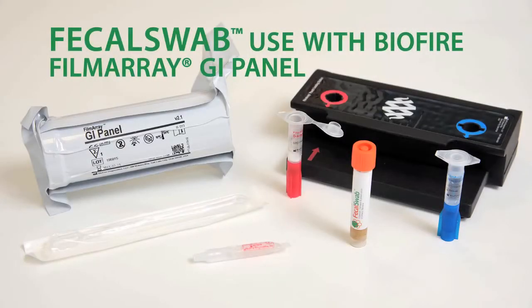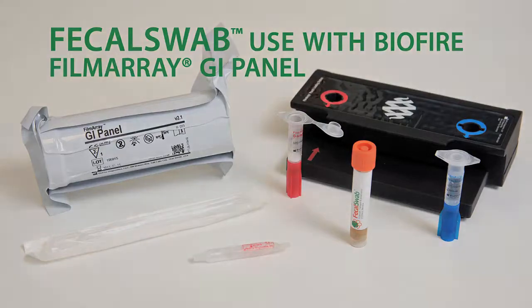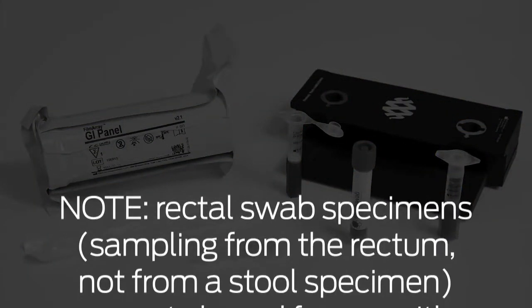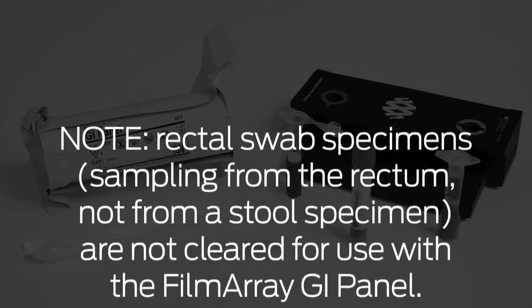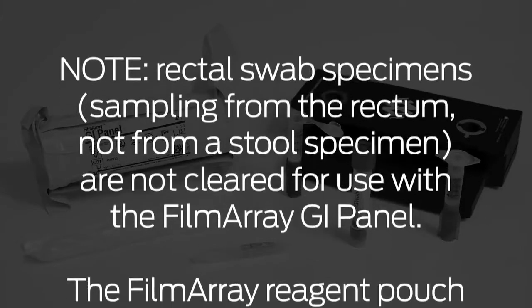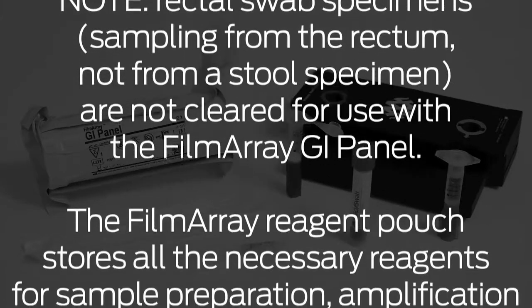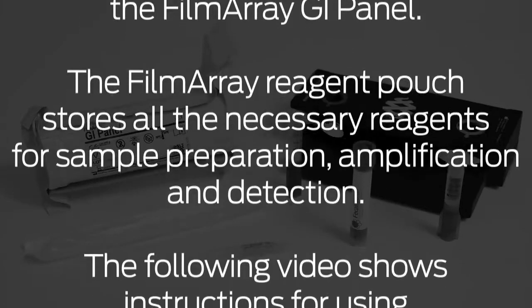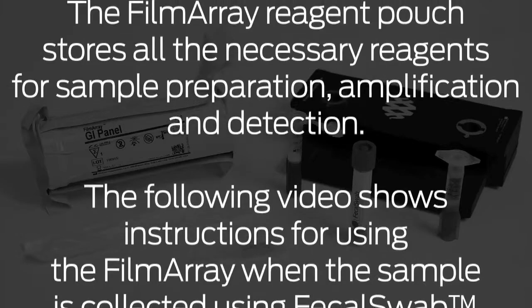Now that the sample has been collected and received, you are ready to begin the BioFire FilmArray GI Panel Test. Note, rectal swab specimens, sampling from the rectum not from a stool specimen, are not cleared for use with the FilmArray GI Panel. The FilmArray Reagent Pouch stores all the necessary reagents for sample preparation, amplification and detection.